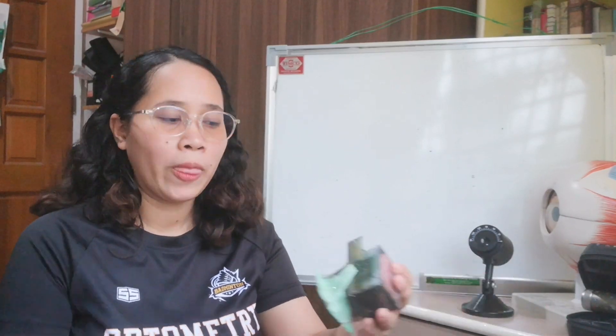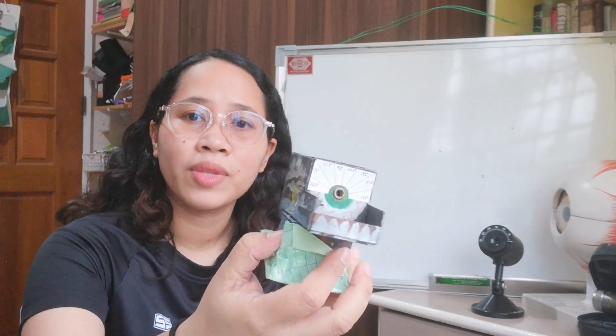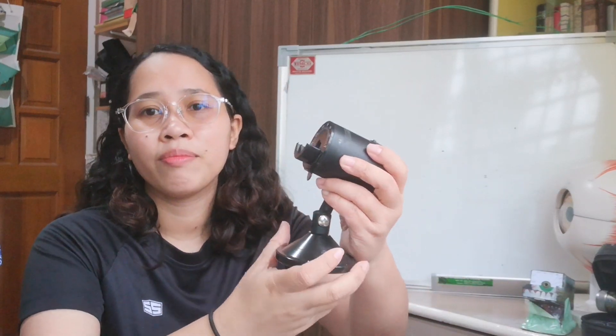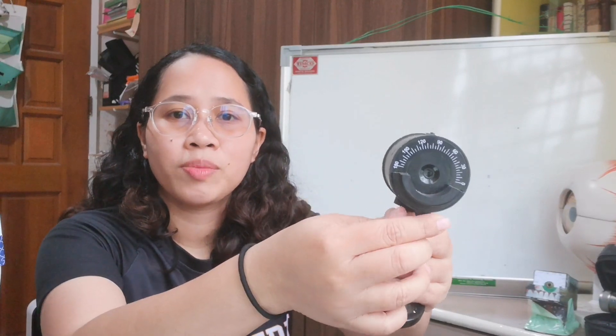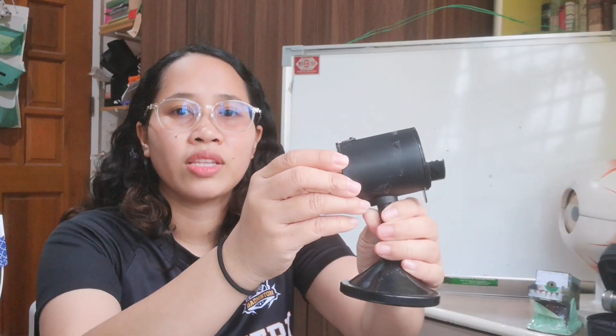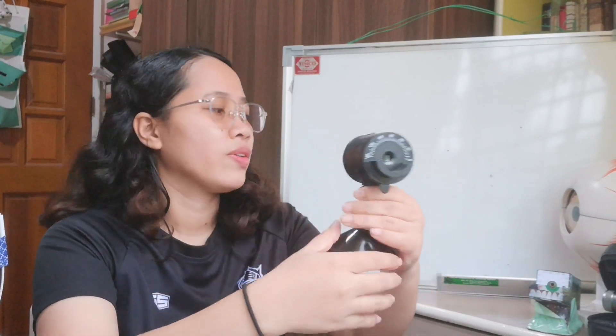In this part of clinical refraction, we have to do the schematic eye. This is an example of a schematic eye that the students made. And this one, we have the actual schematic eye bought from the U.S. The pupil diameter is adjustable, and also at the back it's adjustable.